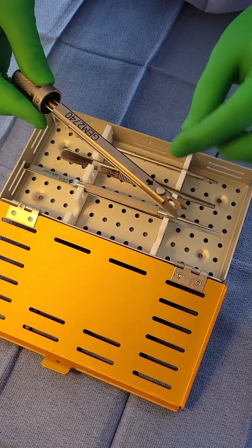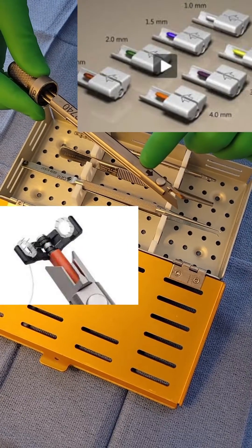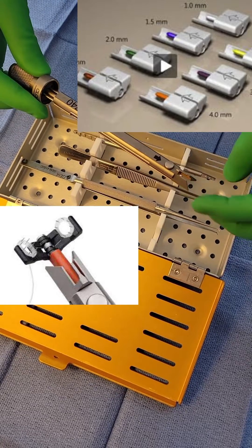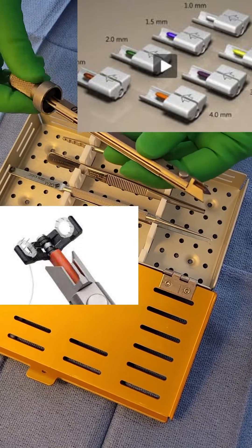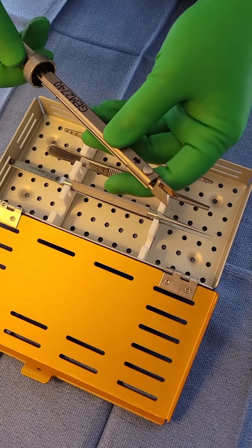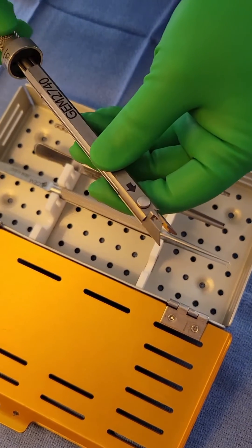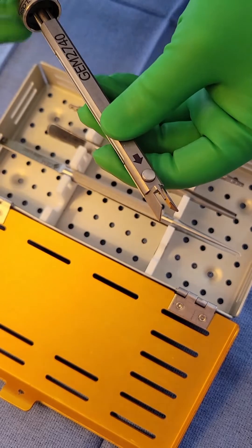If you'll notice this arrow right here, this is where the coupling implant attaches. You have to make sure the space on this gap right here that I'm closing and opening is closed all the way, meaning there is no space here in order to attach the implant.